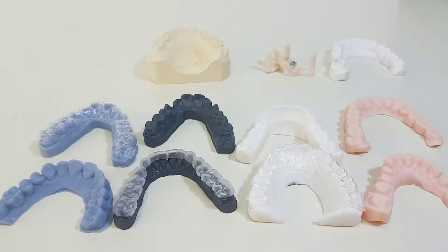Hi, my name is Marco. I wanted to show some of the results with different printers and different resins. I think it's important to understand the benefits and the drawbacks depending on your machine or the resin that you choose.